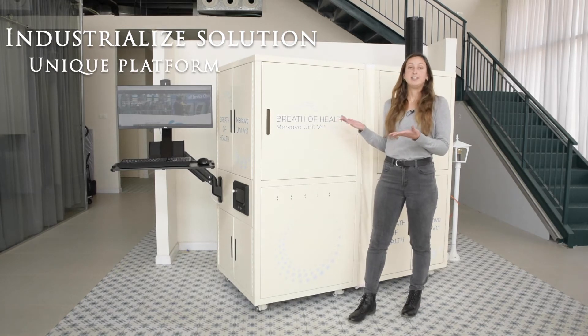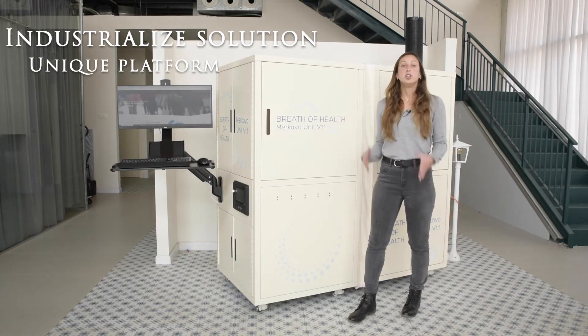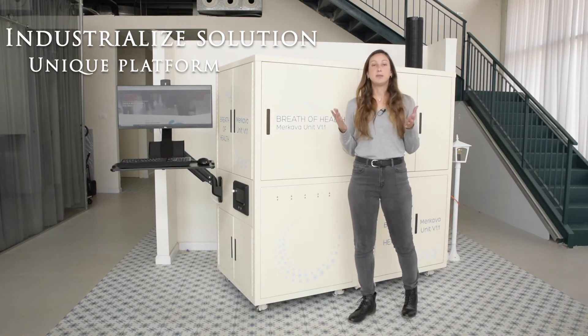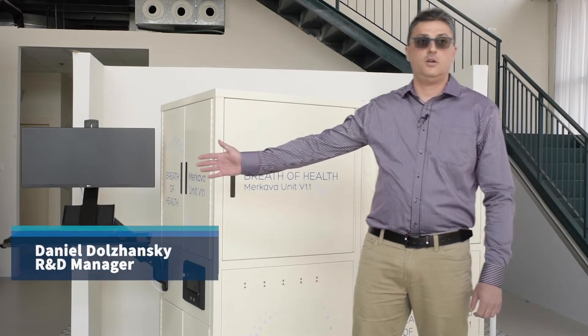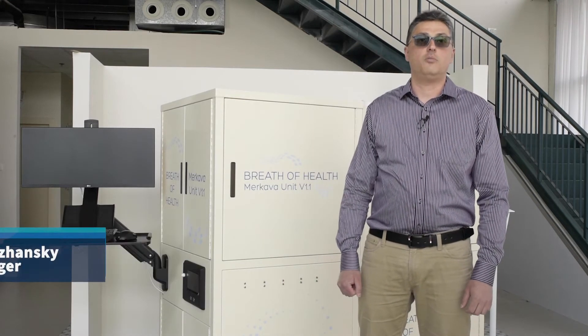Merkava product is designed as a unique platform to identify additional diseases by breath fingerprints. The Merkava unit is a patented technology for analytical method of human breath inspection supported by AI proprietary platform.